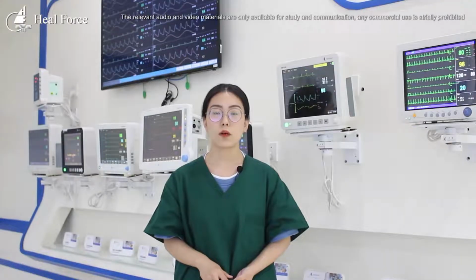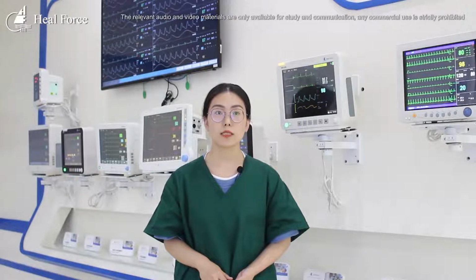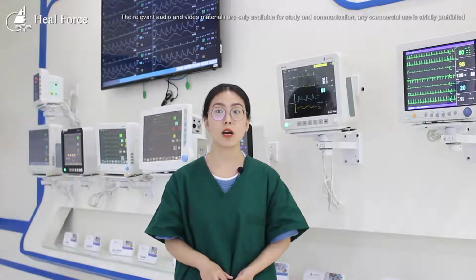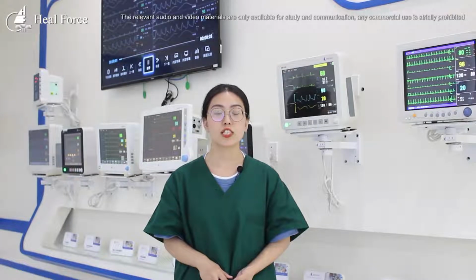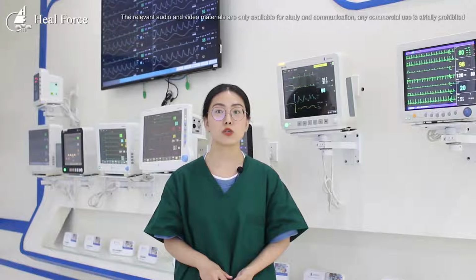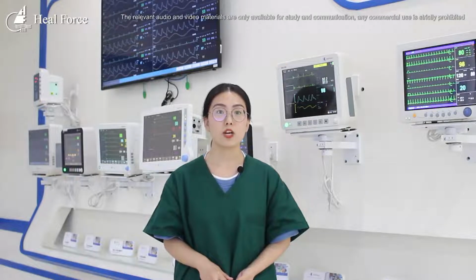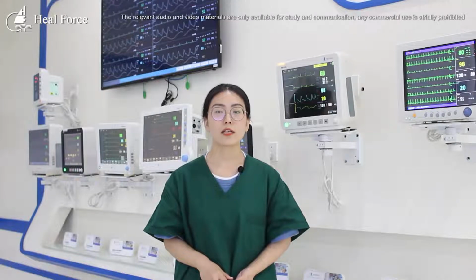In the past, monitors were used in the monitoring of critically ill patients. Now, with the progress of biomedical science, they have been widely used in clinical practice, from the original anesthesia, ICU, NICU, ER, and other departments to neurology, pre-surgery, orthopedics, and other departments, and have become indispensable equipment in clinical treatment.